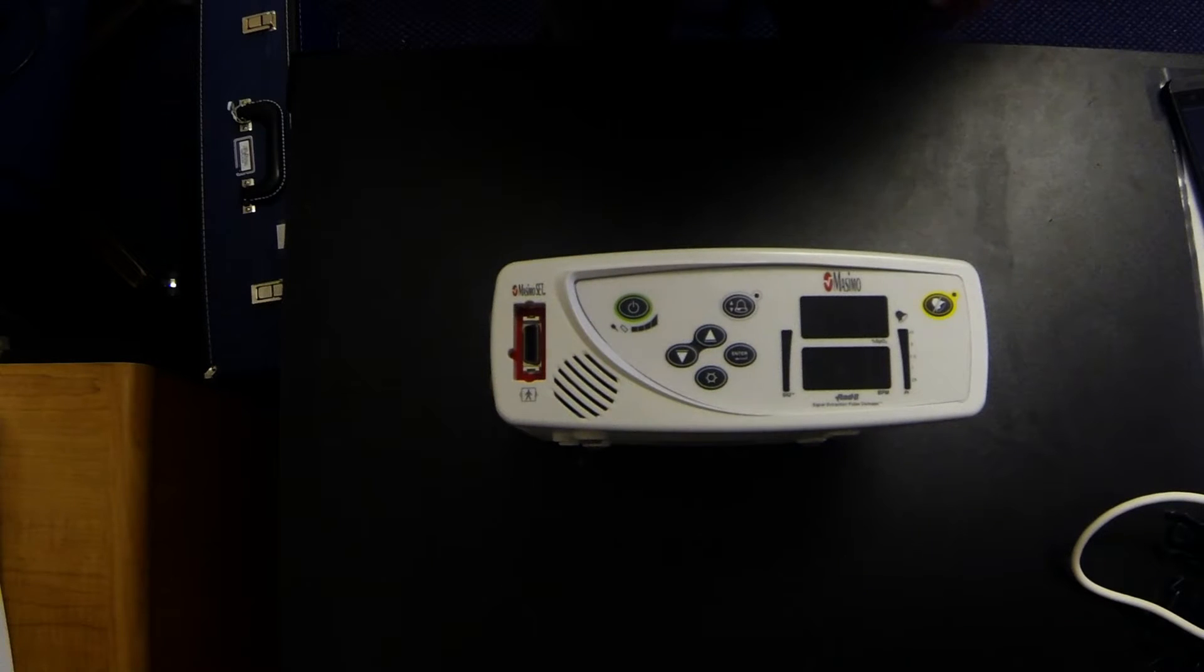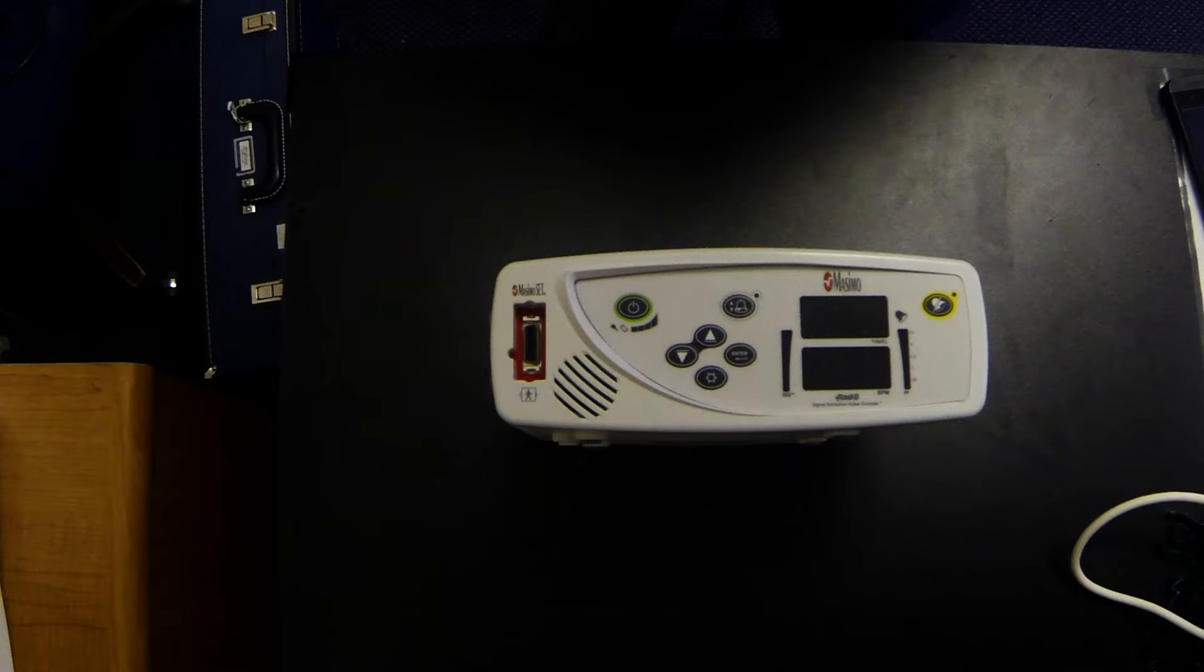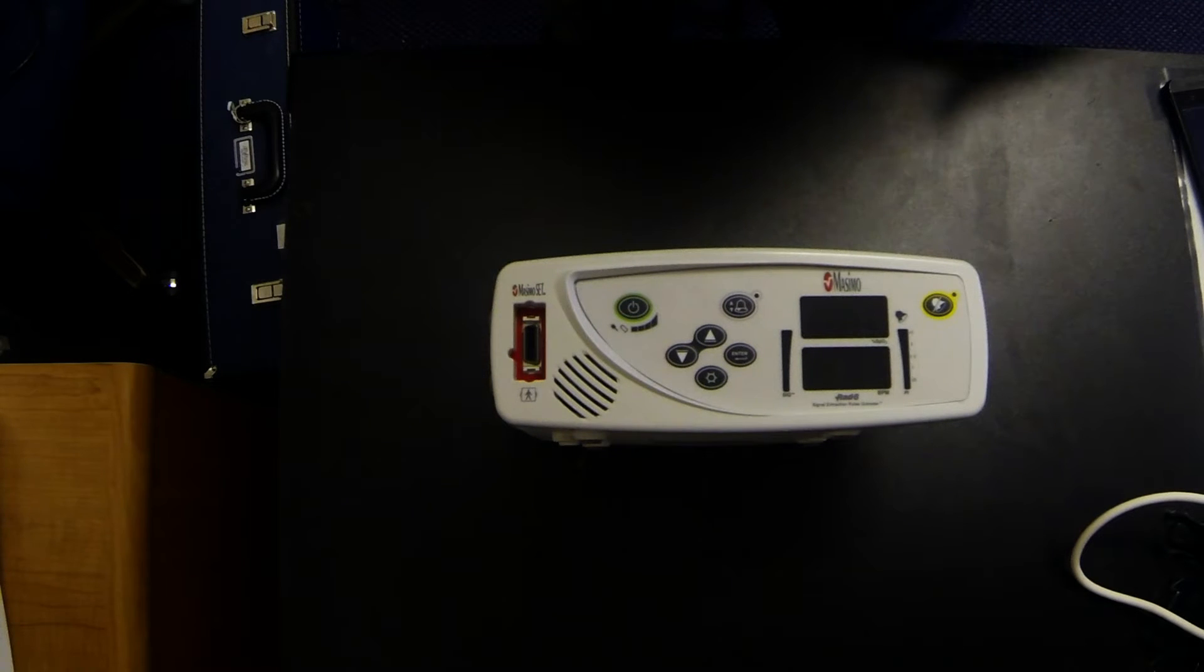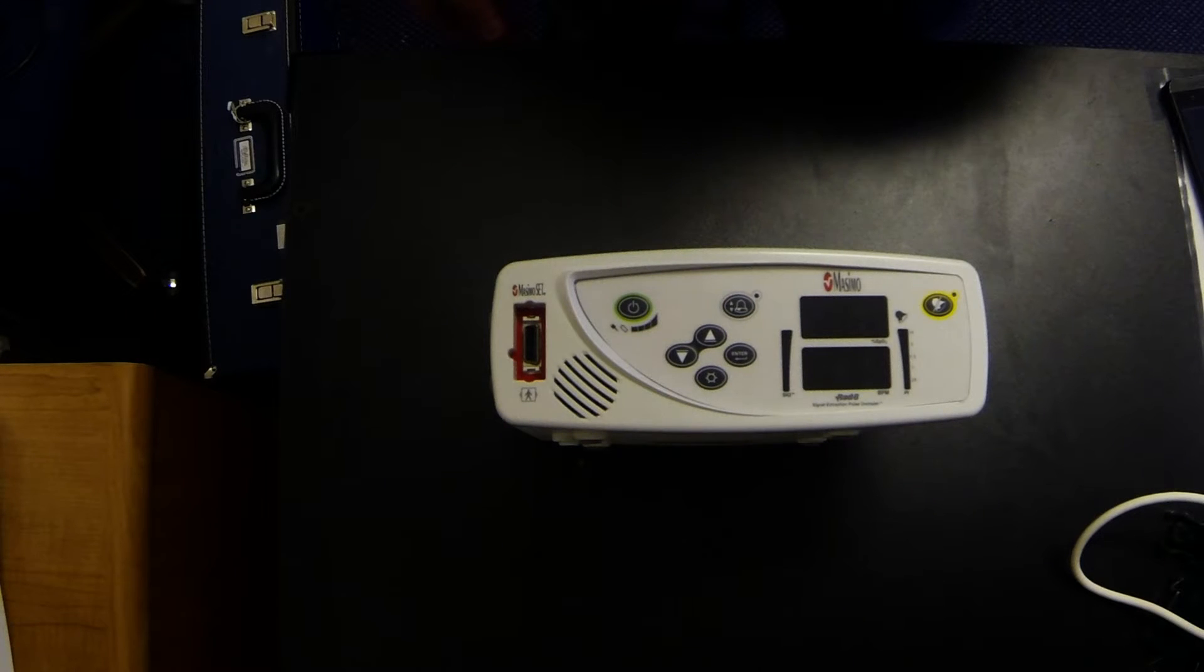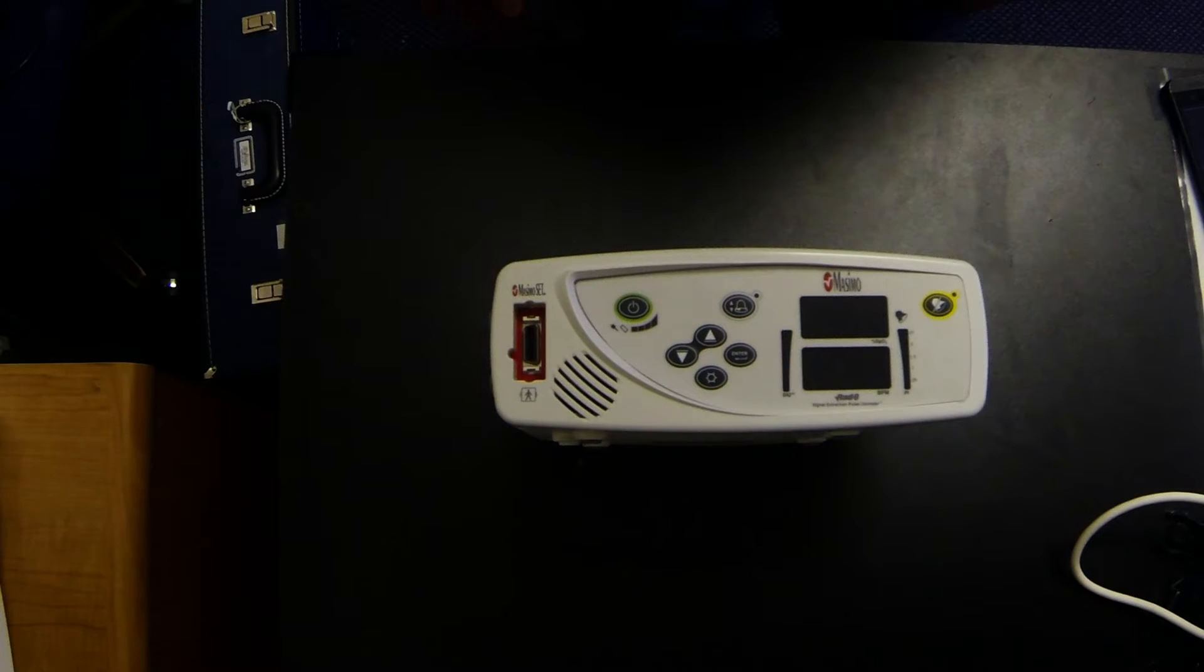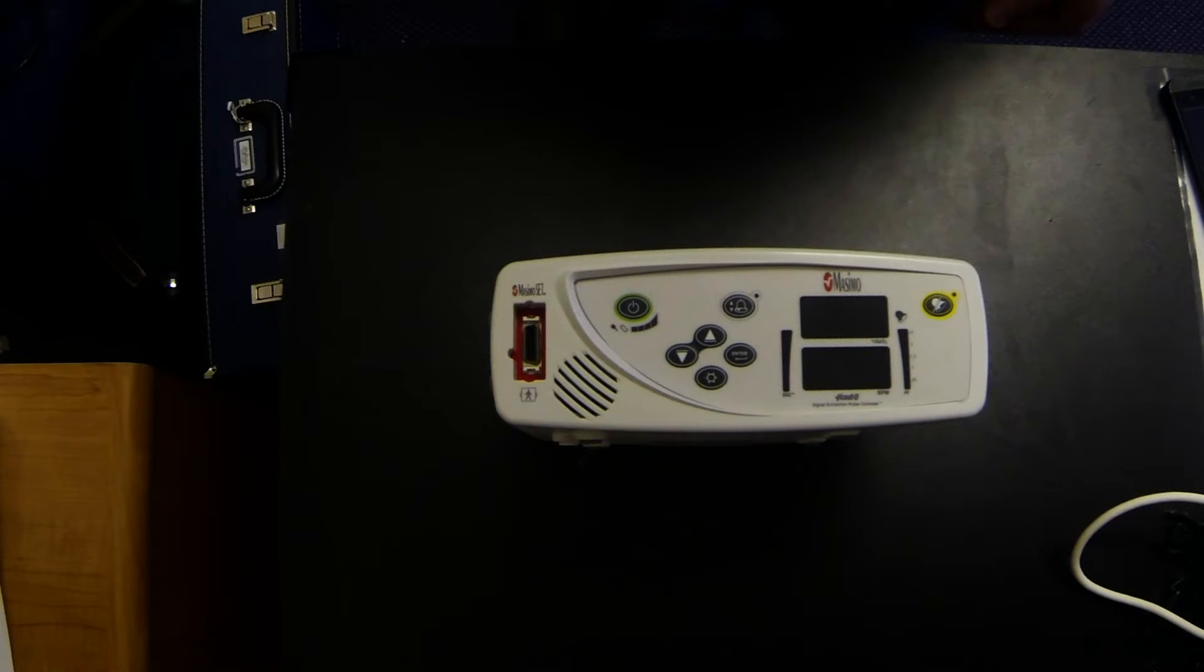Here we have the Massimo RAD8 pulse oximeter. We use this on all of our patients at Tender Hearts Home Health due to its extreme ability to pick up low perfusion signals. Typically we see a lot of low perfusion babies when they're born premature and they go home really small. Since we're using the sensors typically on their feet, and that's the lowest from your heart, we need a machine and a sensor that's going to do the best to pick up the best quality signal that it can, and we believe that the Massimo RAD8 is that machine.